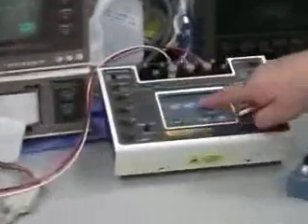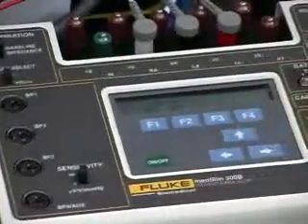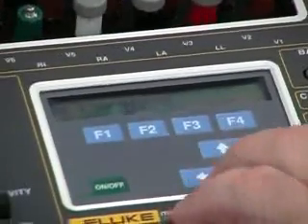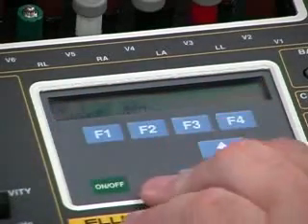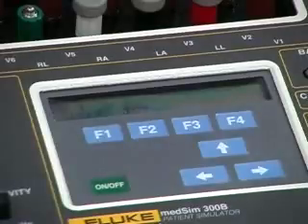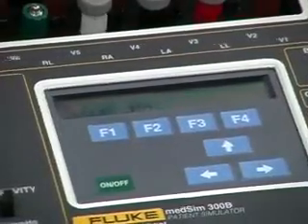Okay. Understand. So blood pressure one is the most wide range, where you can have atmosphere or zero or a wide range of dynamics. Arterial being your standard 120/80, and that does walk through all of the values for the Swan-Ganz procedure. And then static calibrations too. As well, this generates static pressures pneumatically. This does it electrically. It simulates the response of the transducer.